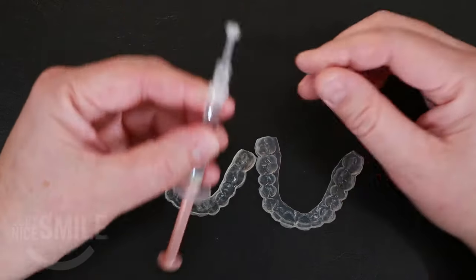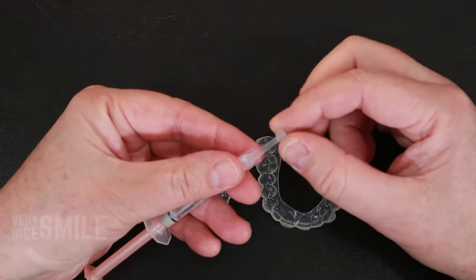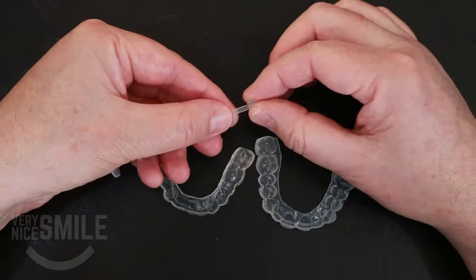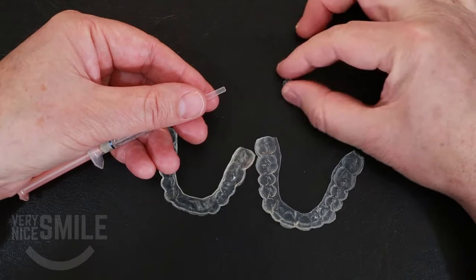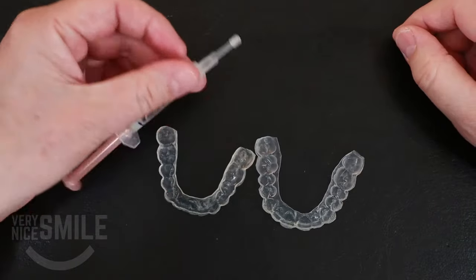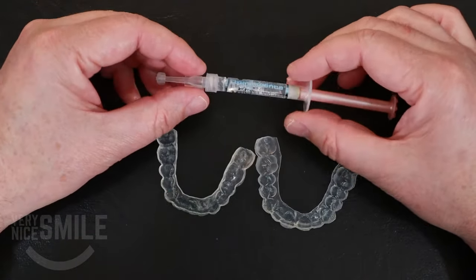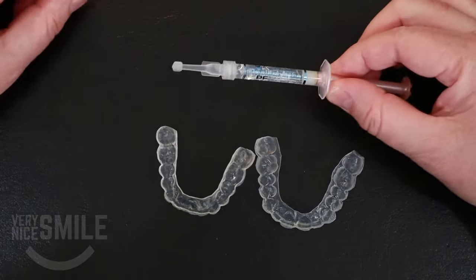Let's take the bleaching gel — it comes in these little tubes, looks like a syringe basically, and it's got a funky little cap on the end. You just twist off and break off. Don't throw this out though, because you can use that as a cap. That'll go back on the end when you're done dispensing the bleach and that'll seal it up, because each tube of bleaching gel is not just one-time use — you could easily get two or three days of gel out of each tube.